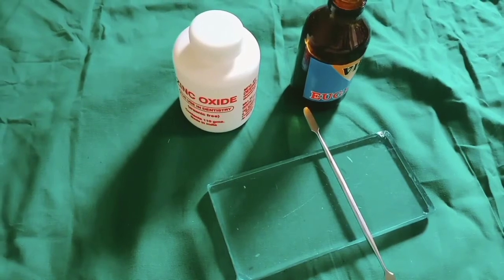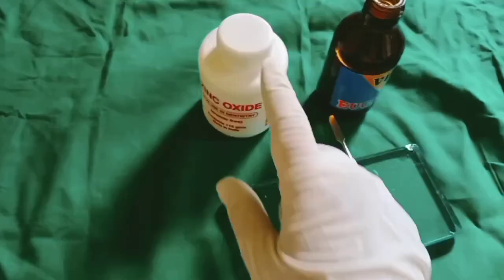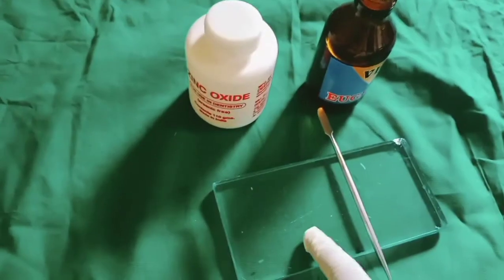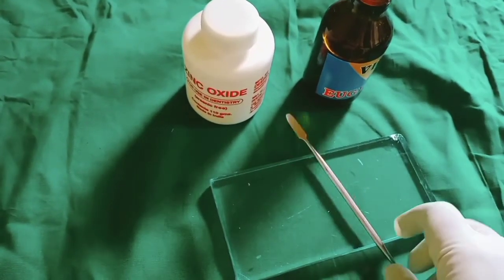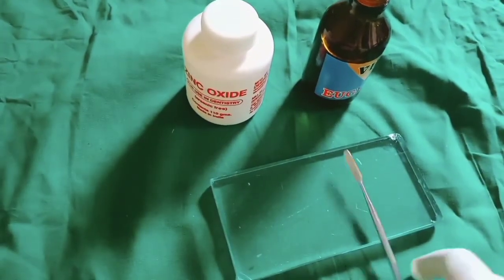Zinc oxide eugenol is available in the form of a powder and a liquid. It is mixed on a glass slab with the help of a stainless steel spatula.